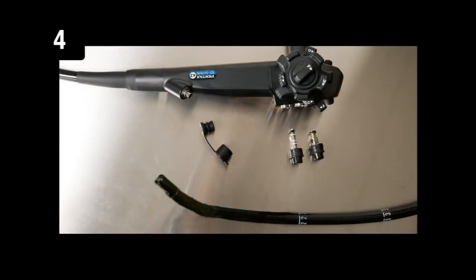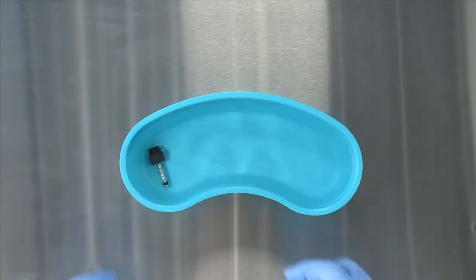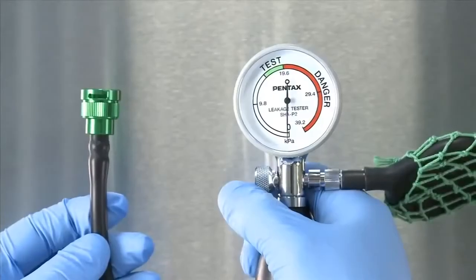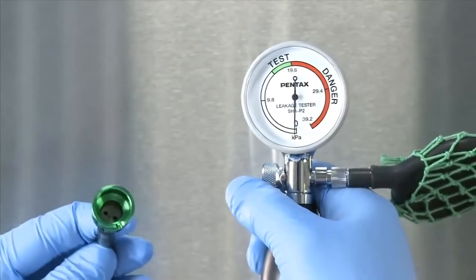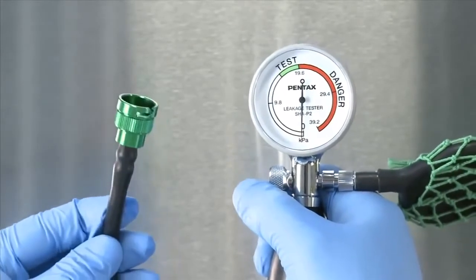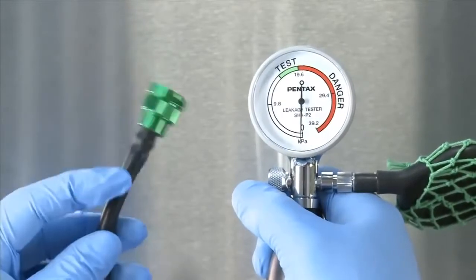Step 4: Prepare to leak test. Detach all removable components from the endoscope and place in enzymatic solution. Confirm that the leakage tester needle is on zero and verify that there is no moisture inside the cap, gauge or tubing and that the needle moves without stopping.